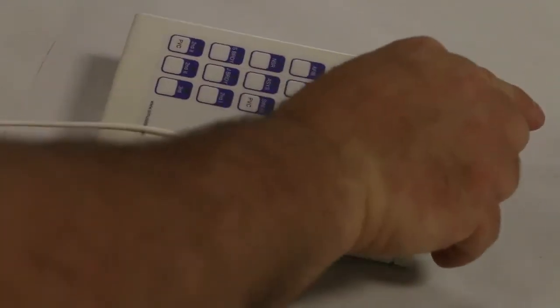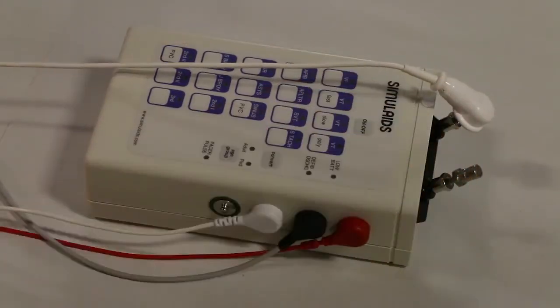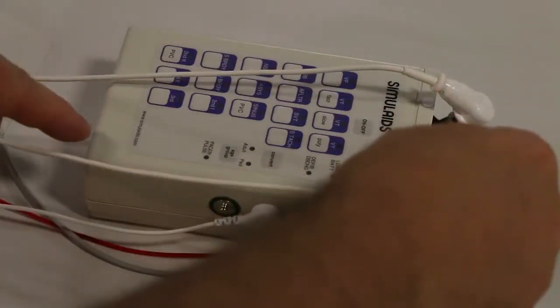Then attach the defibrillation training cables as shown. Note the white dot to help with the orientation.